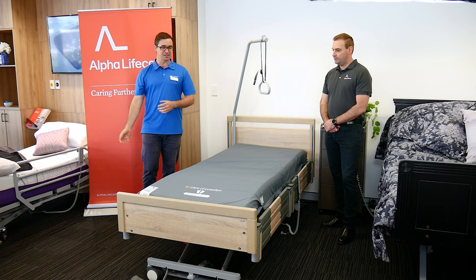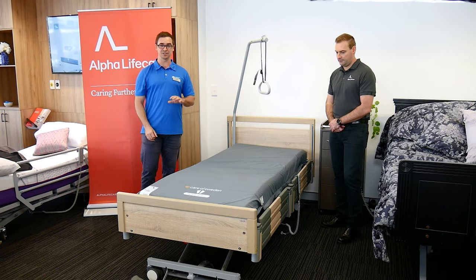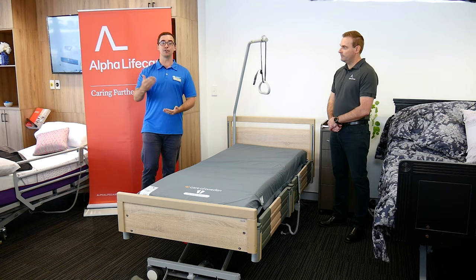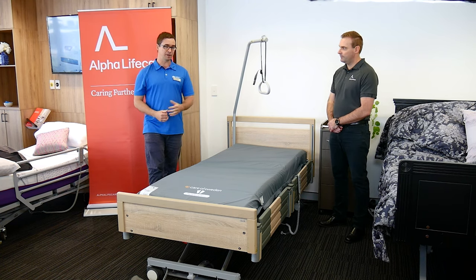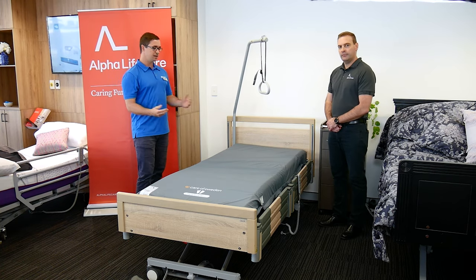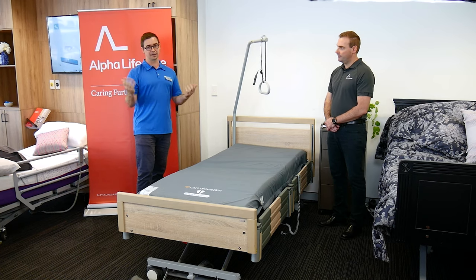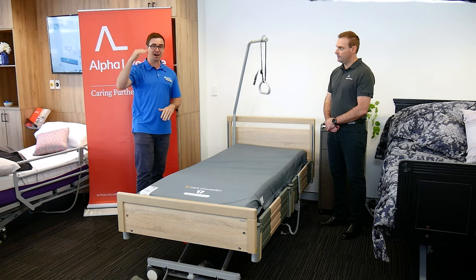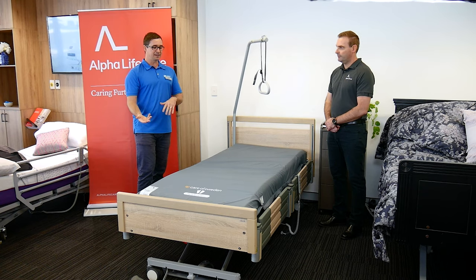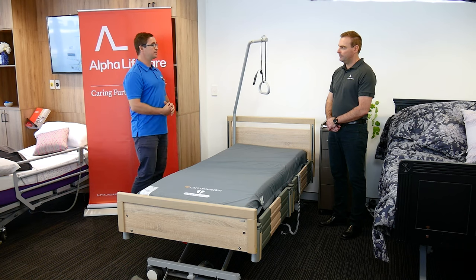For those in the aged care and disability sector, there are other considerations around a low bed regarding whether that is restraining somebody from moving. Our occupational therapists are very good at talking through those different considerations. In terms of the different height options, it's really great for facilitating transfers — everyone's of a different height and different length of limbs, which means their ability to transfer at the right height is very important.